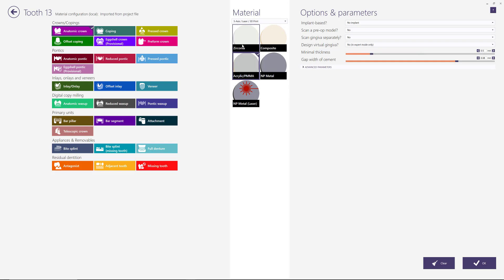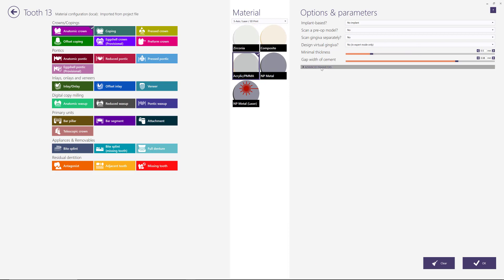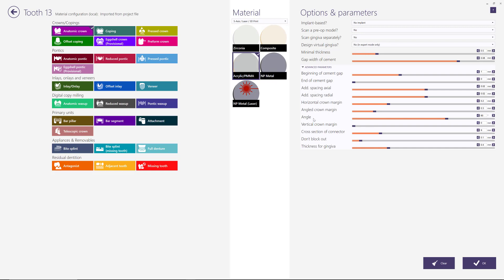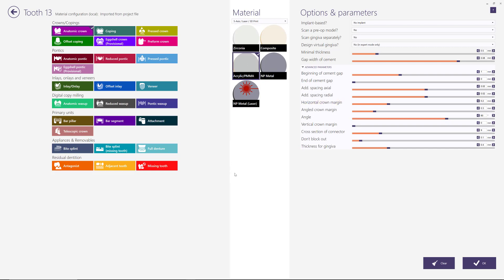One of the things that we need to pay attention to primarily is the minimum thickness, and as you can see it changes from material to material. That's one of the things we want to keep in mind, and then there's also some materials here especially when it comes to the crown border. As I make changes here you can see how certain things change, and we just want to make note of those so that we can alter that inside of the design software.